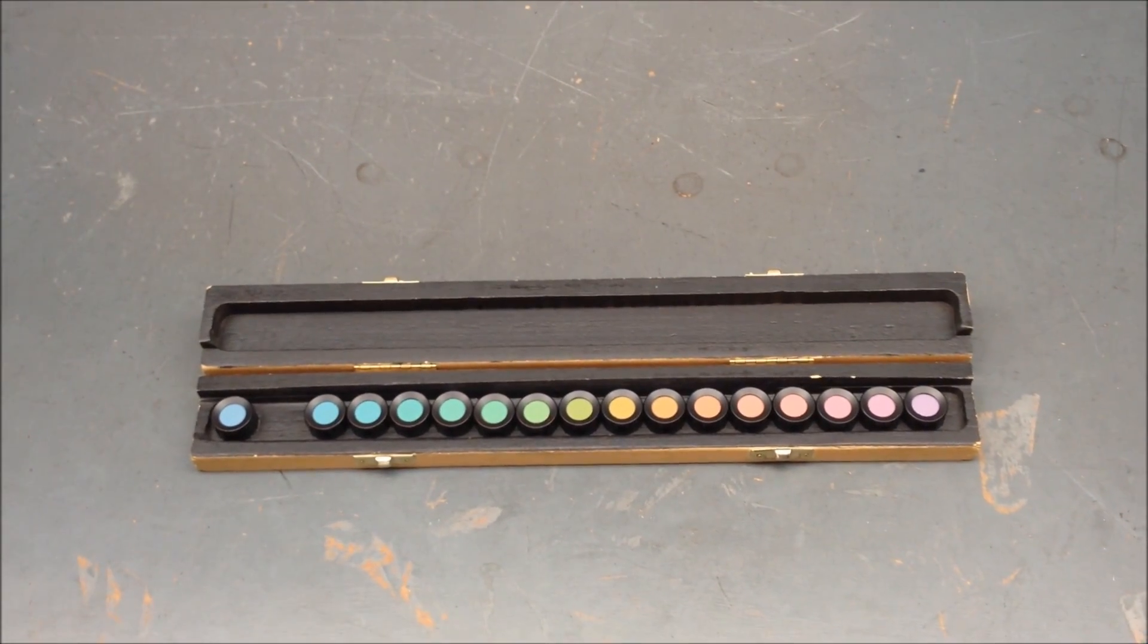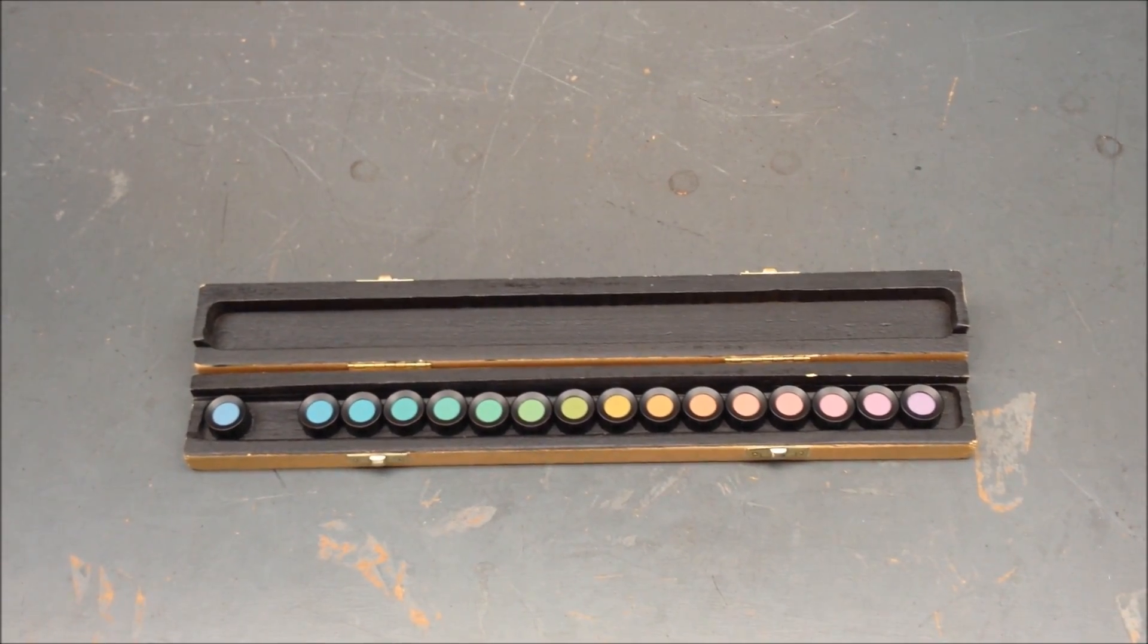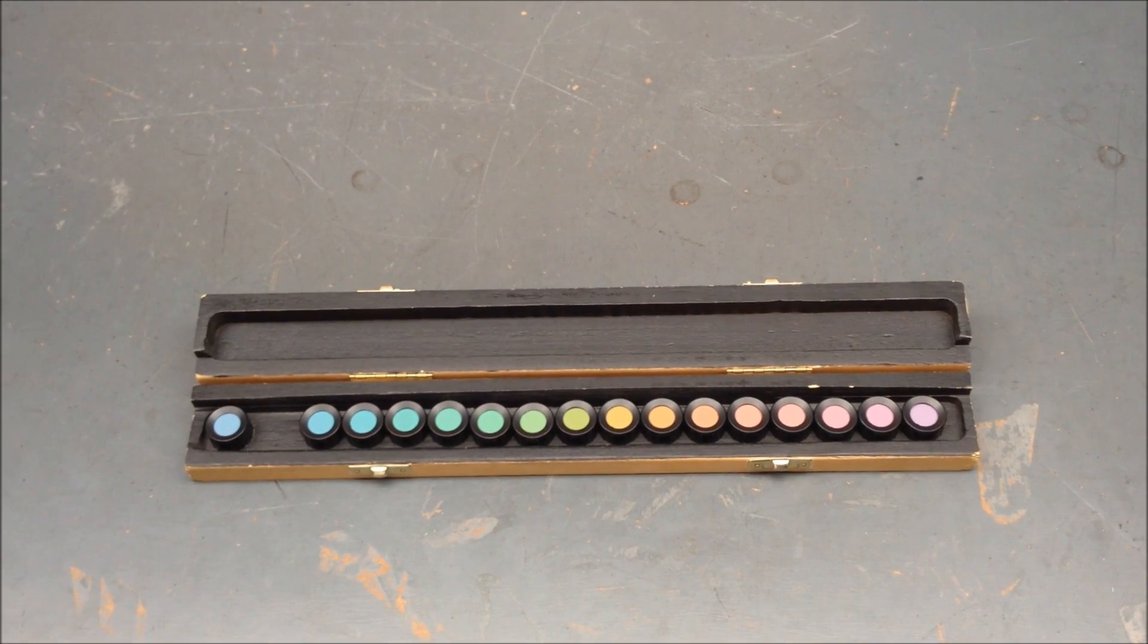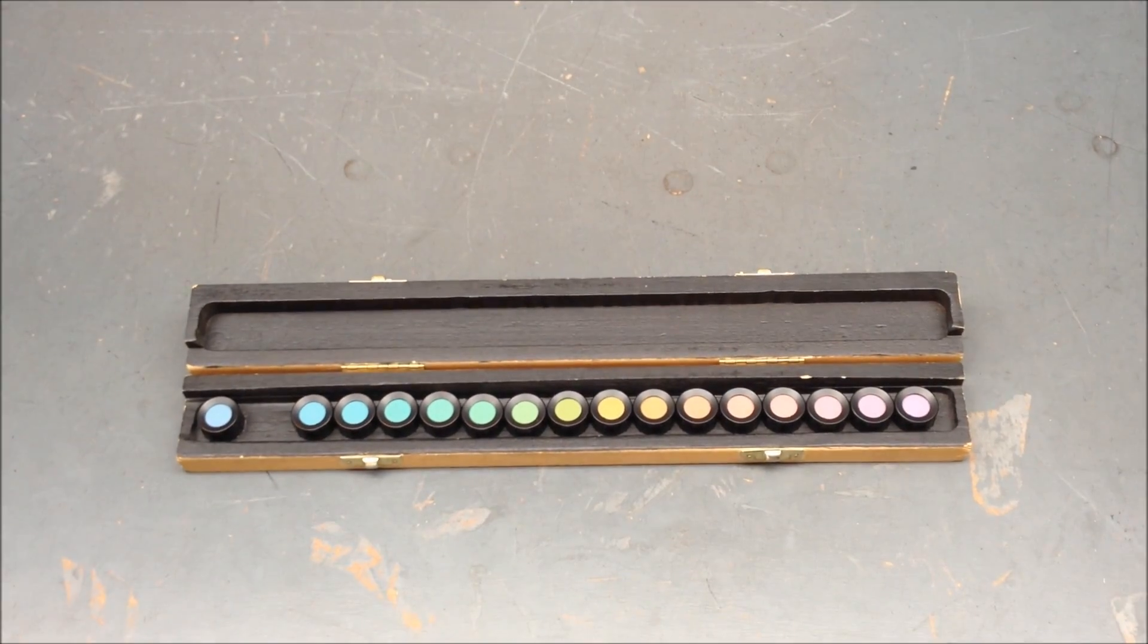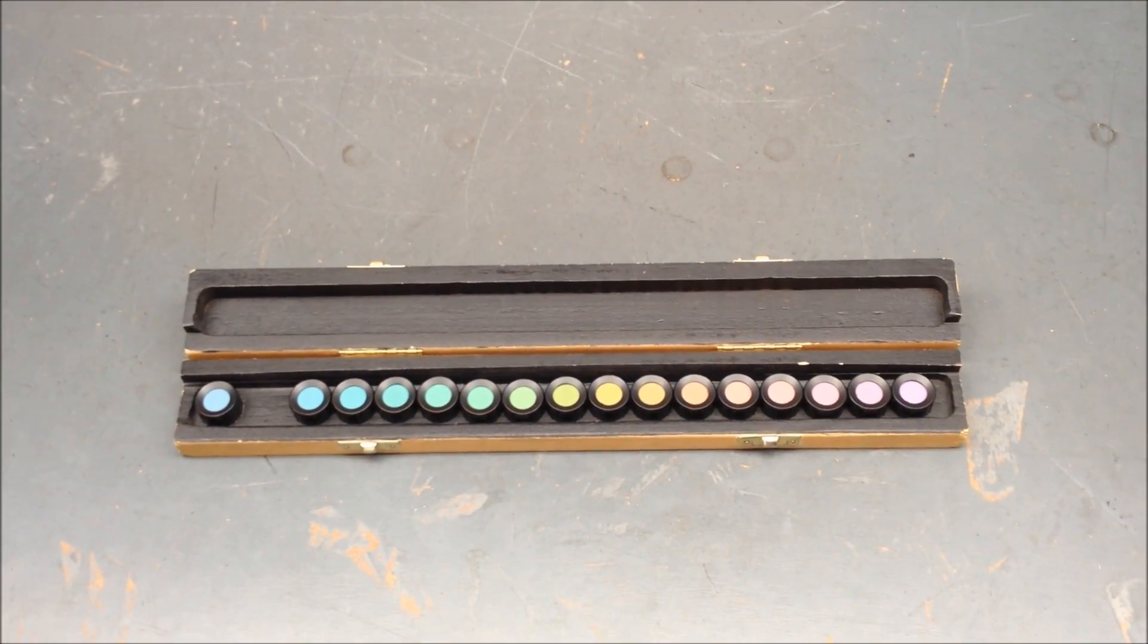The test divides people into two groups: the first of whom with normal color vision or slight deficiency who pass the test, and the second group who consist of those with moderate to severe color deficiencies who fail the test.